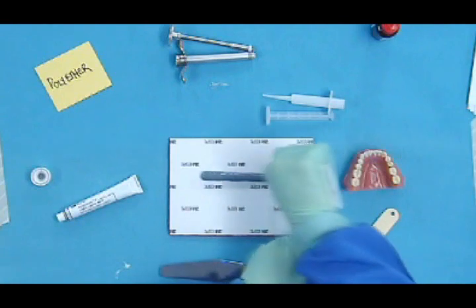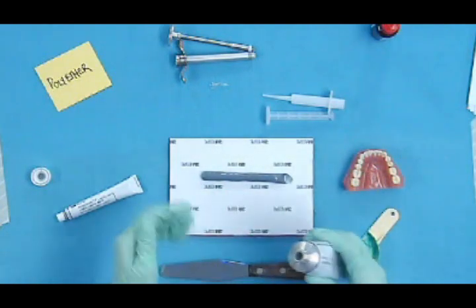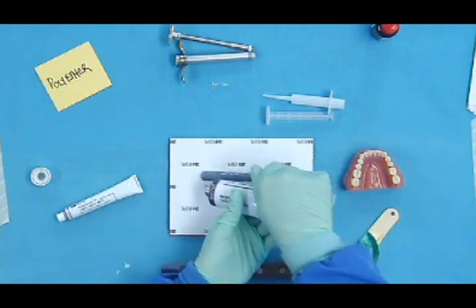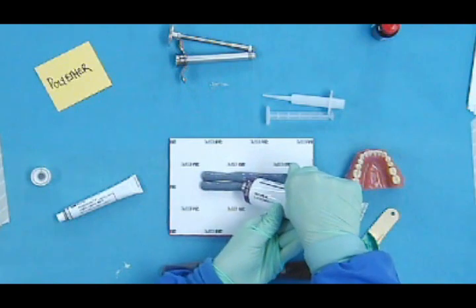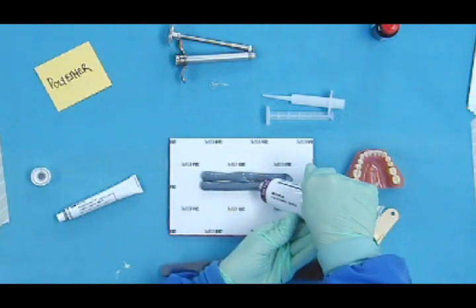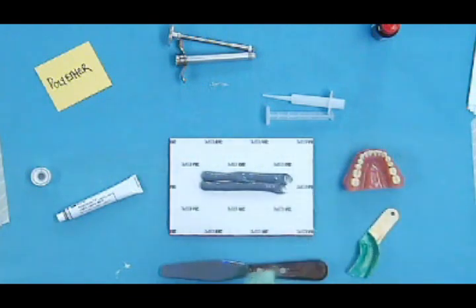You can see I'm just kind of letting it go out of the tube the size of the hole. I'm not backing it up on itself. There's my base.